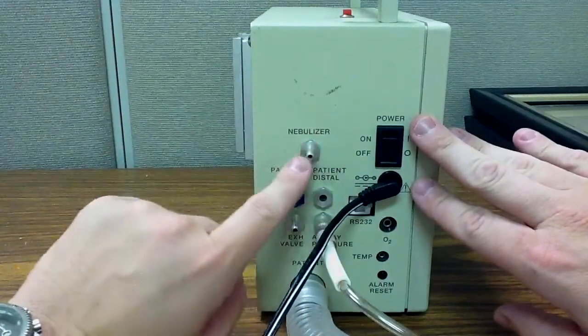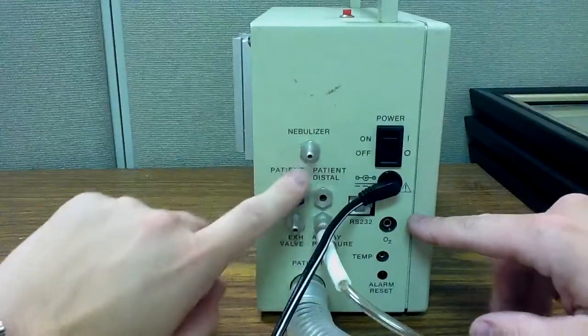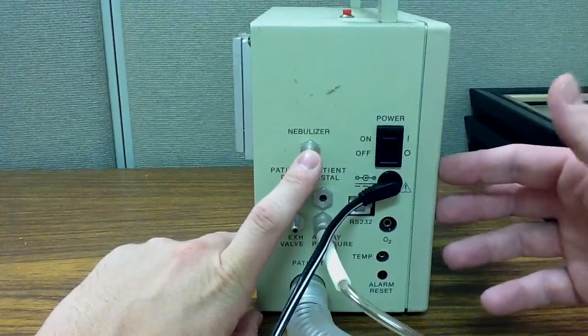Gas will flow through here and administer basically a breath of nebulizer, of nebulized particles to the patient.